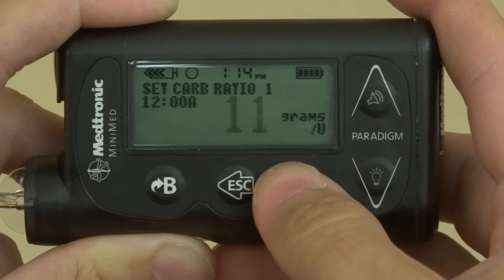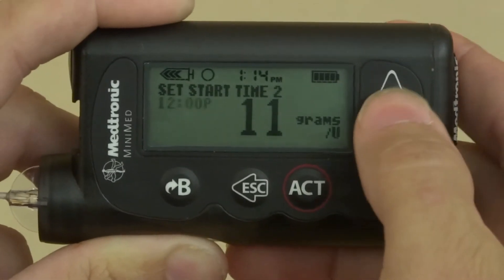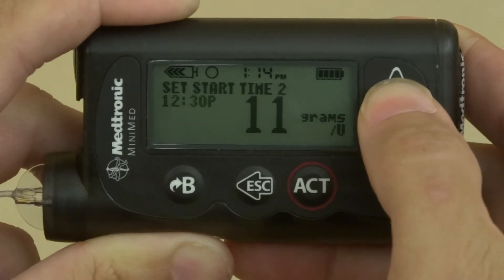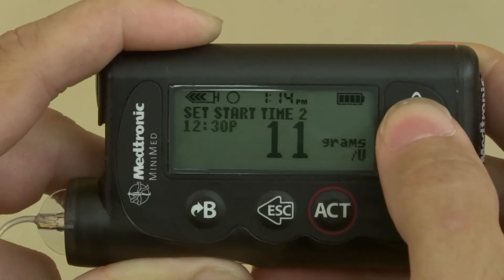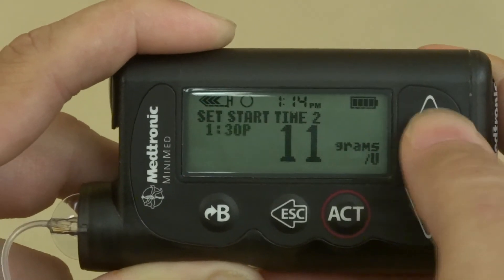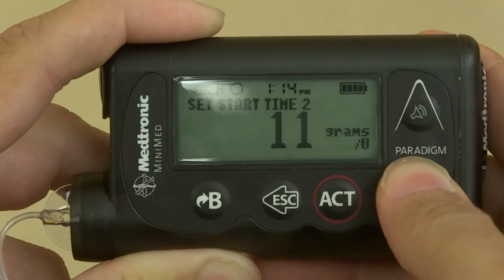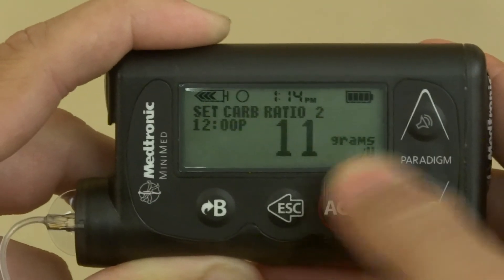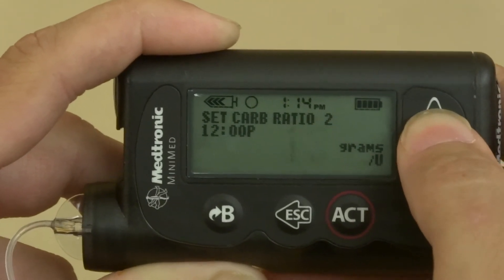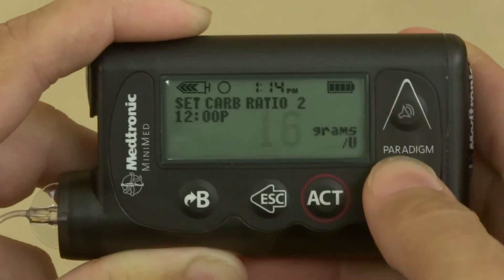Then you can change the time that you want the ratio to begin, as well as the ratio number.